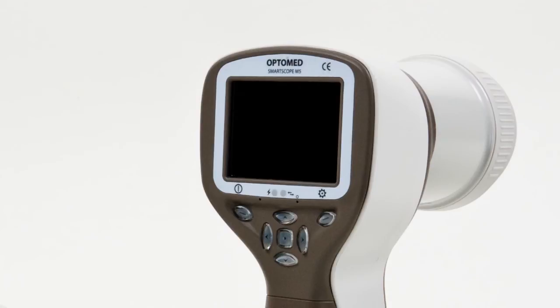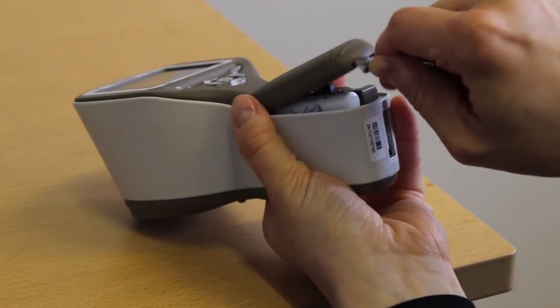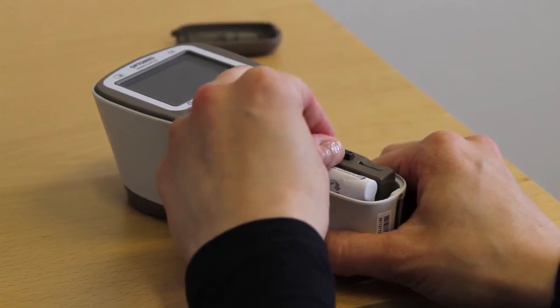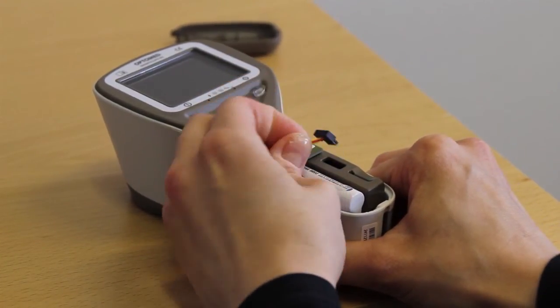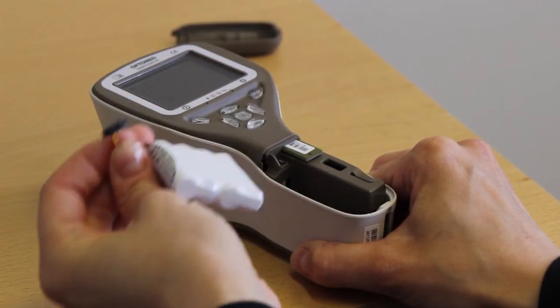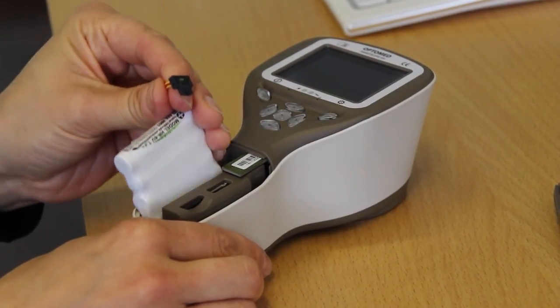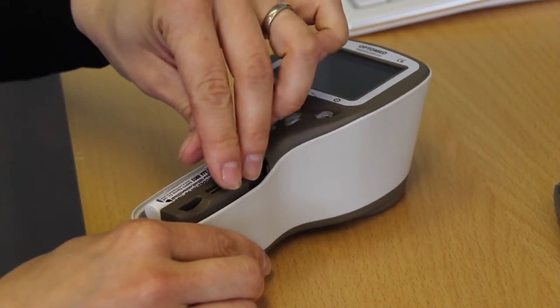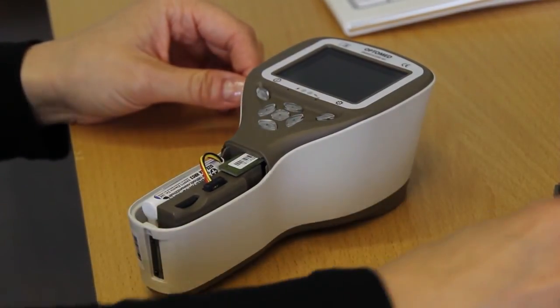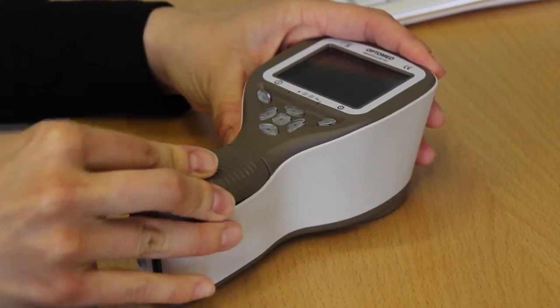Replacing the battery. If you need to replace the battery, first open the battery compartment cover using a pen or small pointy device. Remove the cover by lifting it up, then remove the battery by squeezing the battery wires with a finger and pulling the connector out of the socket. Put the new battery in the same position and gently attach the connector into the socket. Finally, replace the battery compartment cover and secure it by snapping it firmly into place.